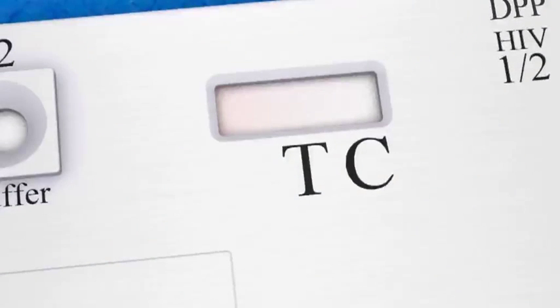After about three minutes, a reddish color will spread across the strip in the test window, as a signal that the lines are starting to appear.